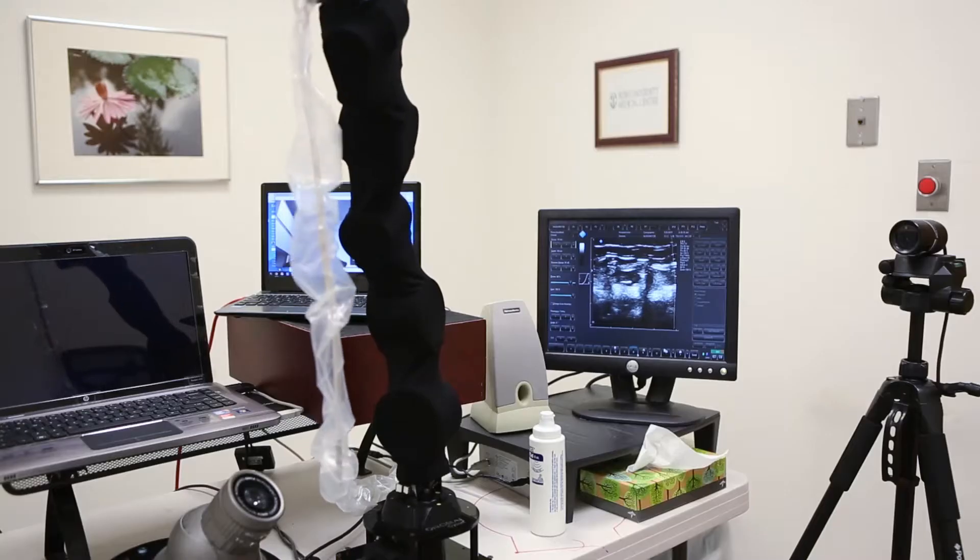These machines are ubiquitous in health care. We use them all the time to image lots of different organs. It just uses sound waves to create images of the heart or the GI tract or practically any organ. It's a very common test.